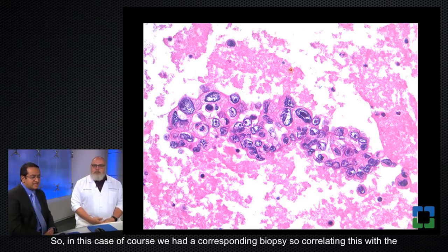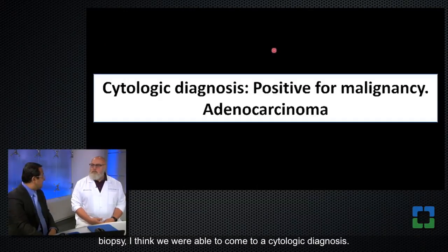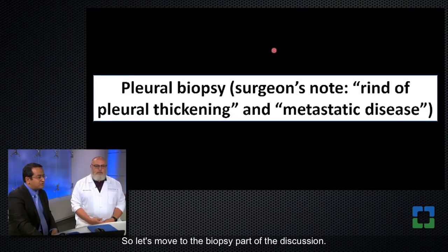Okay. So in this case, of course, we had a corresponding biopsy. So correlating this with the biopsy, I think we were able to come to a cytologic diagnosis. It was called positive for malignancy and adenocarcinoma. So let's move to the biopsy part of the discussion.